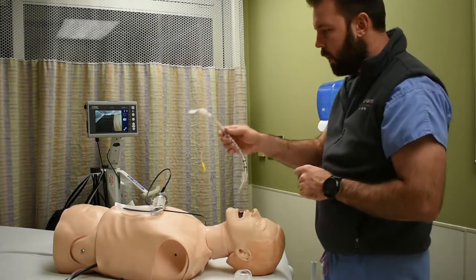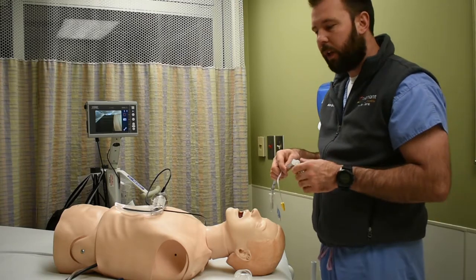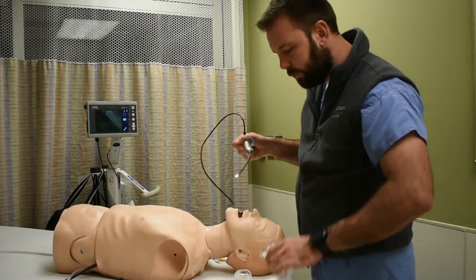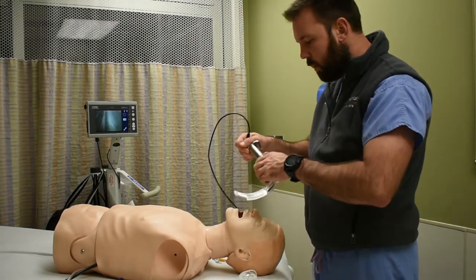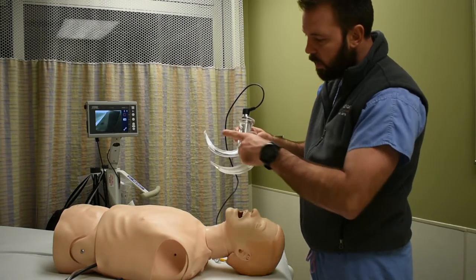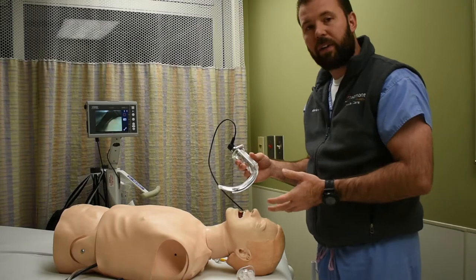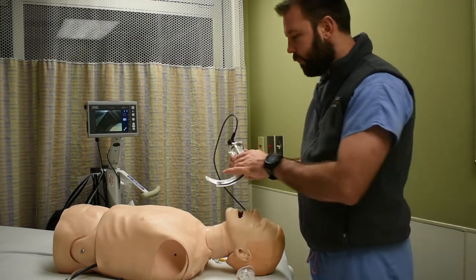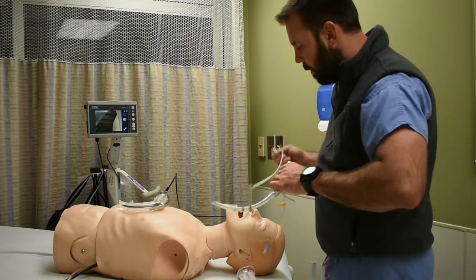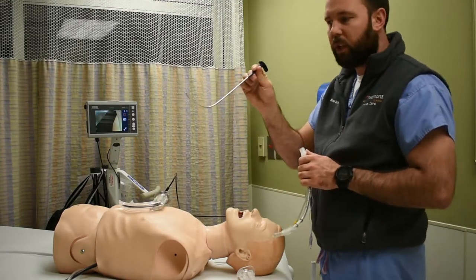Now I want to talk about a technique highly specific to video laryngoscopy: the use of a hyperangulated blade. The C-MAC scope here uses what's referred to as the D-blade. As you can see, the tip of the blade is more angulated, and this helps you navigate an anterior airway. With this D-blade or hyperangulated blade, we should be using a hyperangulated and rigid stylet.